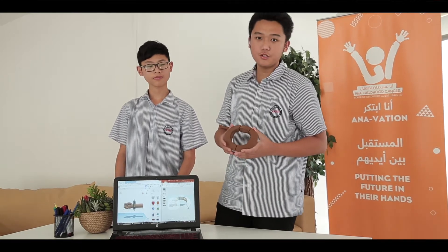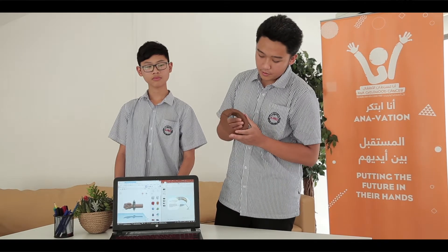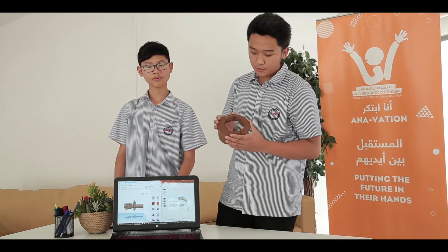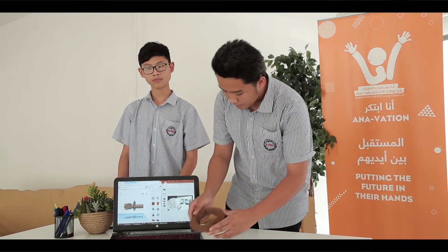This is basically so that children can put their hand inside easily and smoothly without getting hurt, and also take the x-ray photo in an easy and fast way. Our idea came from three sources.